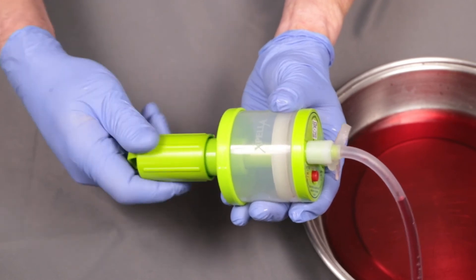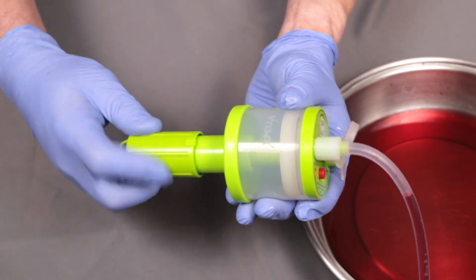The Expeller Mini is now under constant vacuum once again.